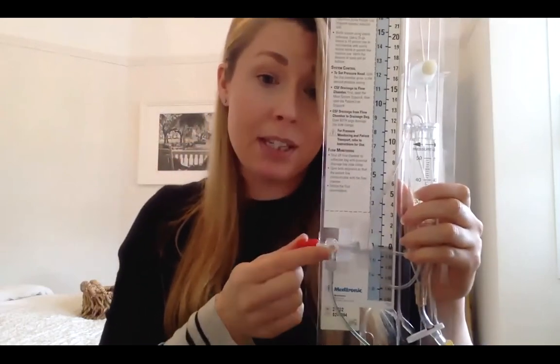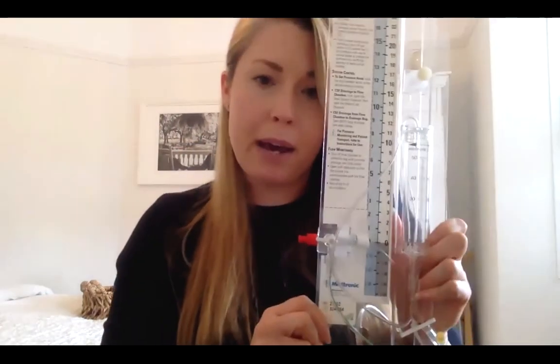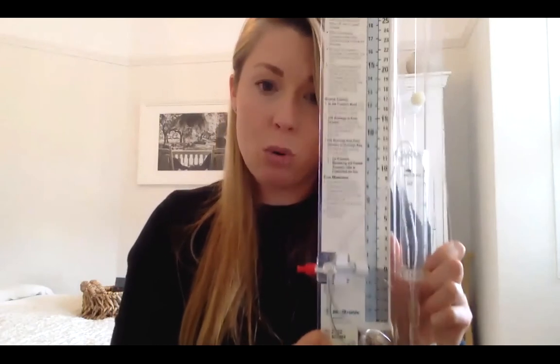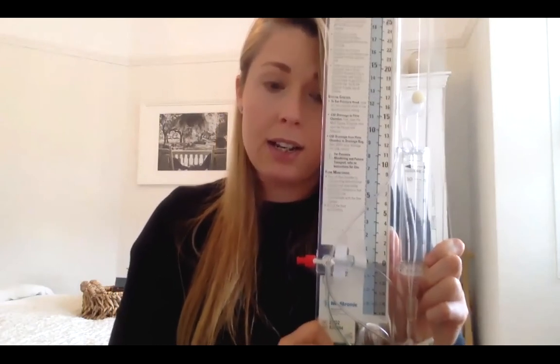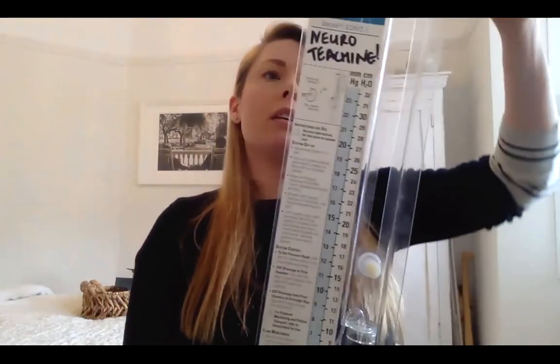So the next hour you might find you've got a 0, but using a troubleshooting system that is the same every time and is documented in this nice clear approach will very quickly in the first few seconds tell you to check your taps, and you'll find that the tap is off and you can open it to drain. So the most important thing to remember about this system is that it's always open to drain, that if you get a 0 drainage or it doesn't drain, you should treat that as a neurosurgical emergency. And follow your troubleshooting process to encourage some CSF drainage.